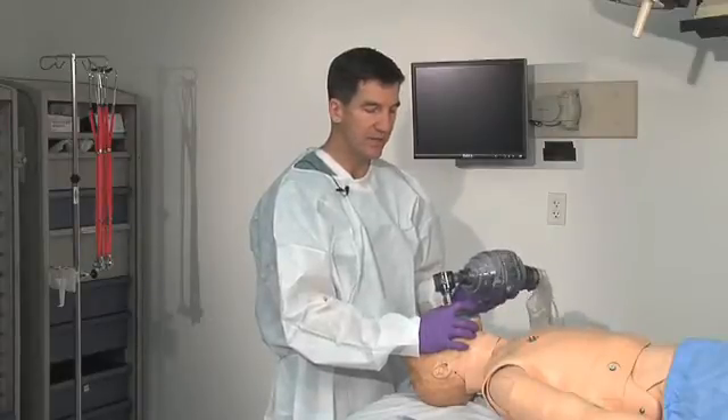Physically this is a little bit of a difficult task. It is best done if an assistant can provide another pair of hands to do the bagging while one person holds the mask in place.